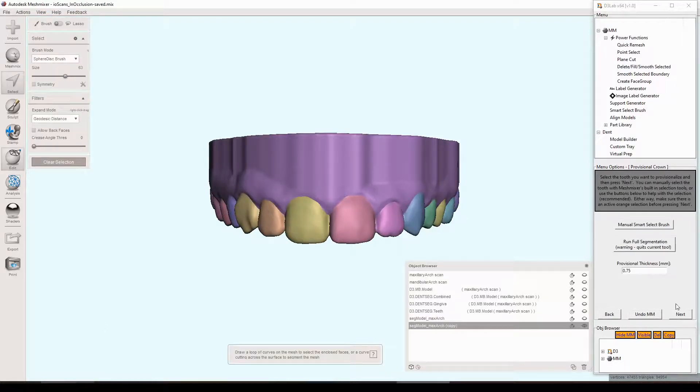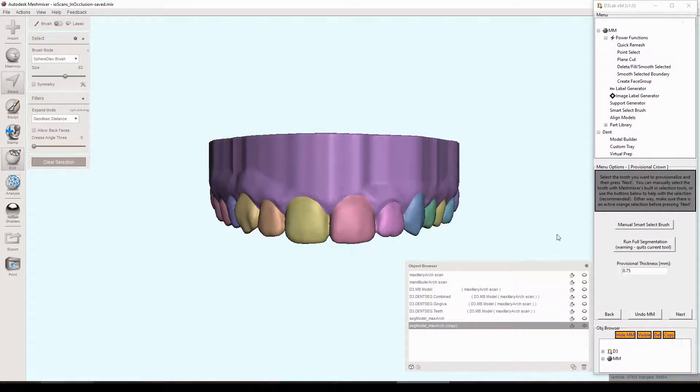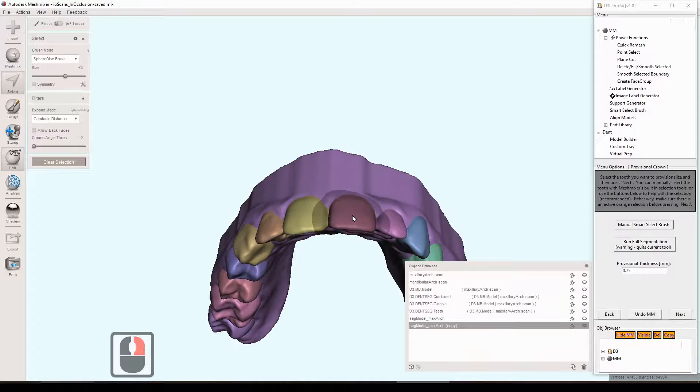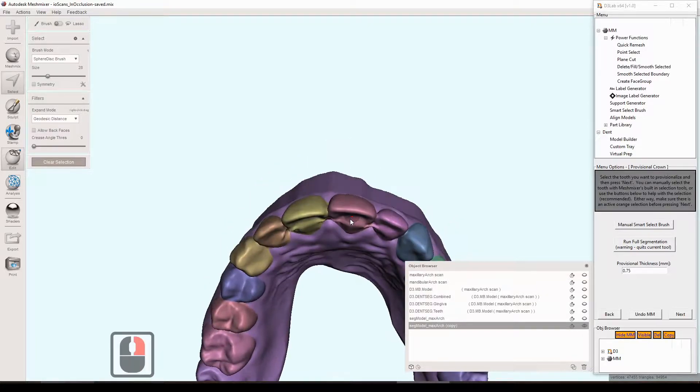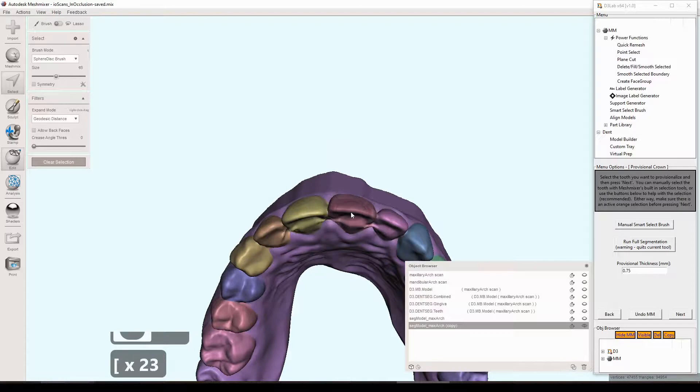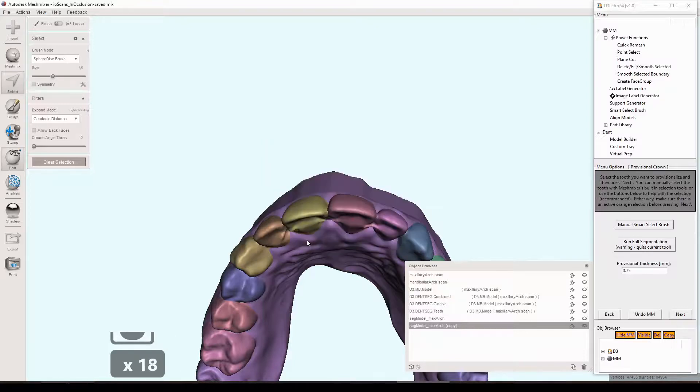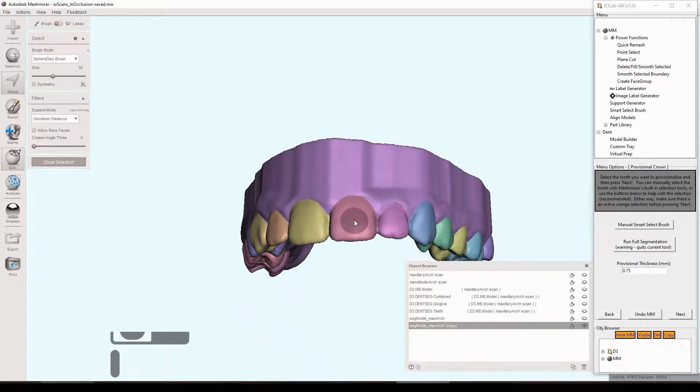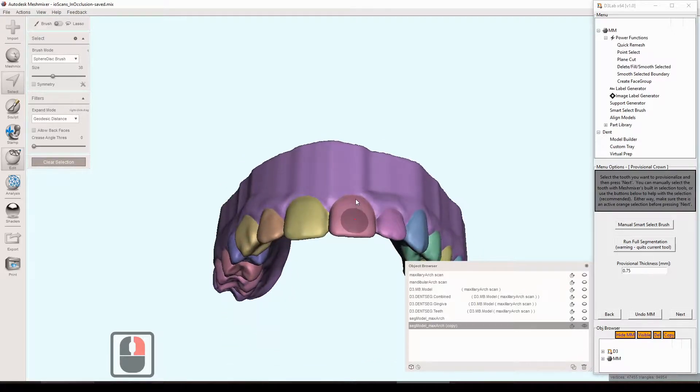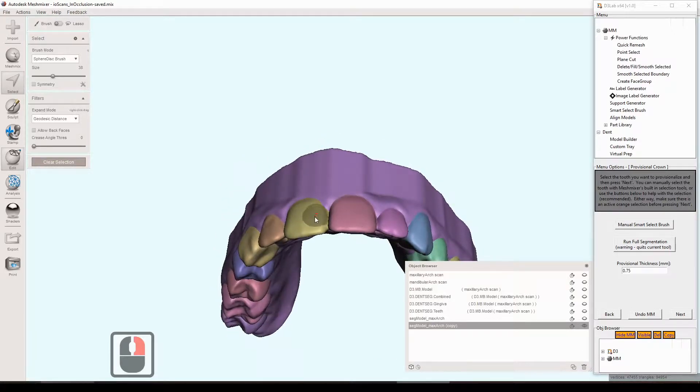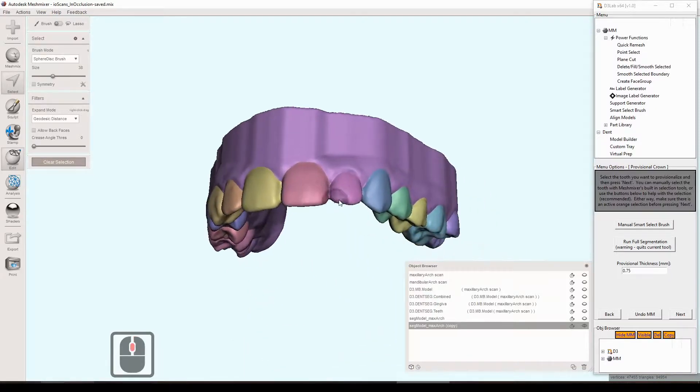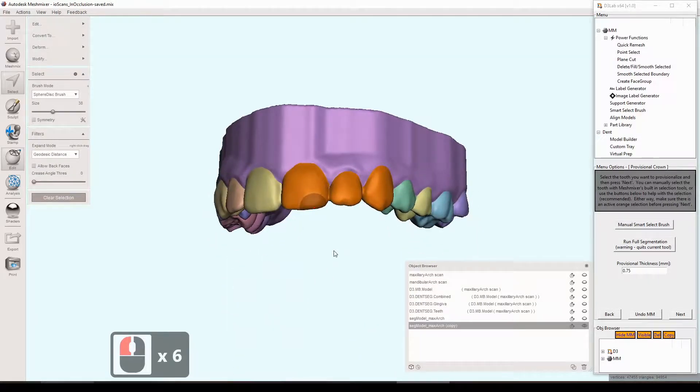And then it asks us basically to select the teeth that we'd like to provisionalize. There's a button there to use the smart select brush, which aids in selecting an individual or multiple teeth if it's not segmented already. But ours is so I can just hit S, get the selection tool and just double click on the teeth that I would like to provisionalize. You can also change the brush size many different ways. You can hold the space bar down and change it right there. You can change the brush size by doing it that way or just in the upper left. You can kind of change it with your mouse there or you can use the bracket tools. There's several different ways to change the size of your brush. It's just nice to know the different ways.